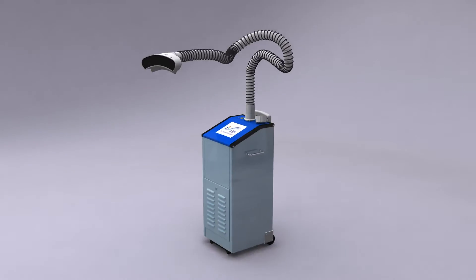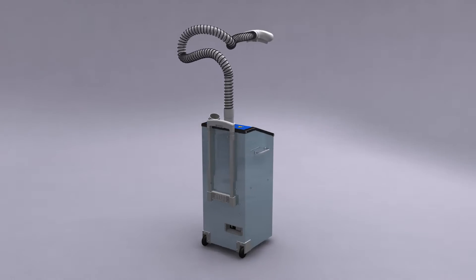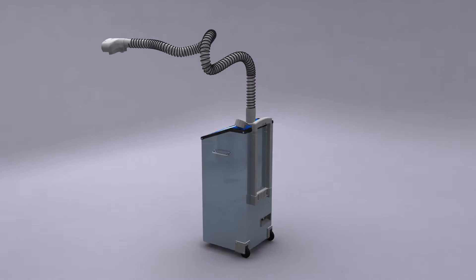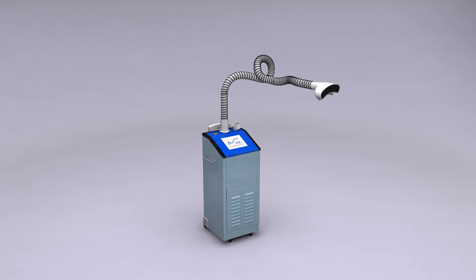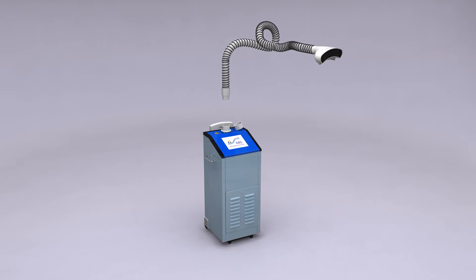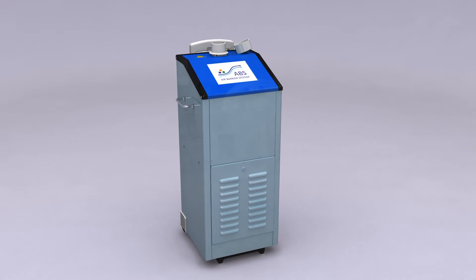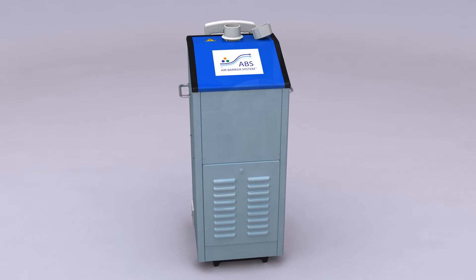The Air Barrier System creates a localized cocoon of clean air surrounding a surgical site that reduces the presence of airborne microorganisms by up to 84%. The ABS consists of two components: a non-sterile filter unit and a sterile air delivery nozzle. The mobile filter unit provides a quiet, efficient, ultra-clean air source.